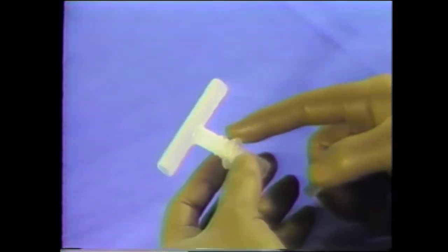All Montgomery safety tubes are supplied as a set which includes two ring washers and a plug.